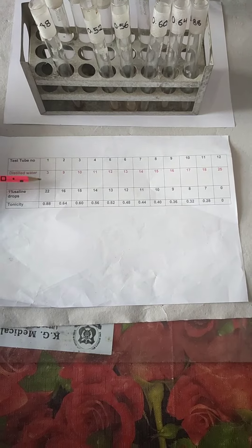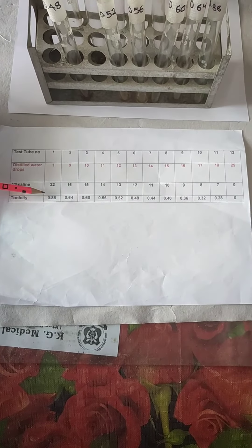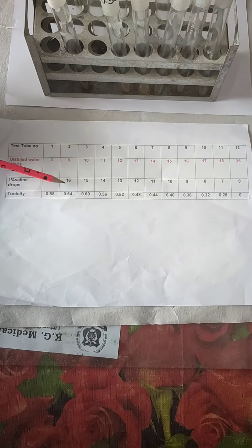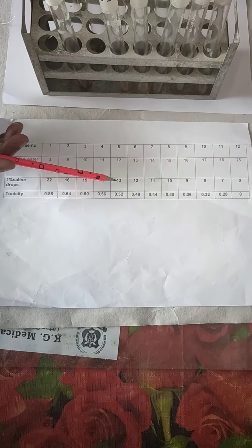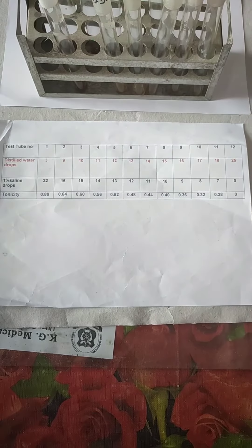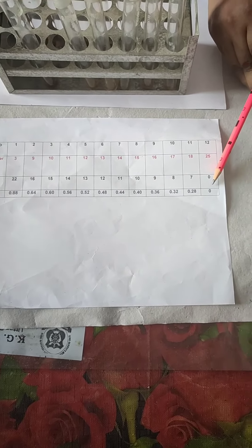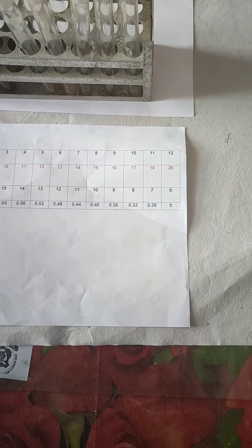So you can see that the first test tube is isotonic, then the tonicity decreases to hypotonicity, and the tonicity diminishes to 0 at the 12th test tube.